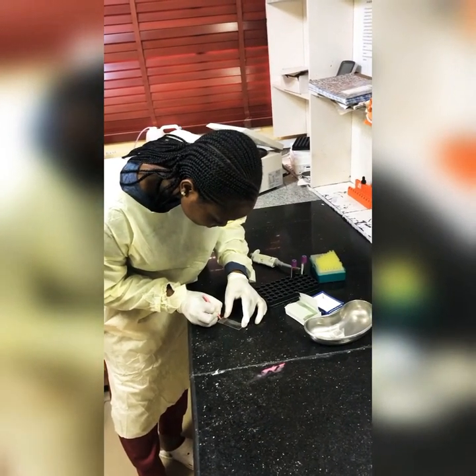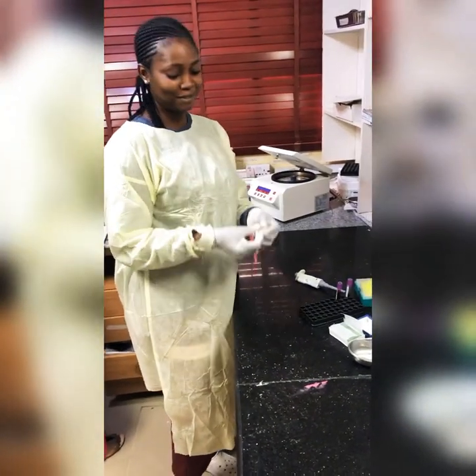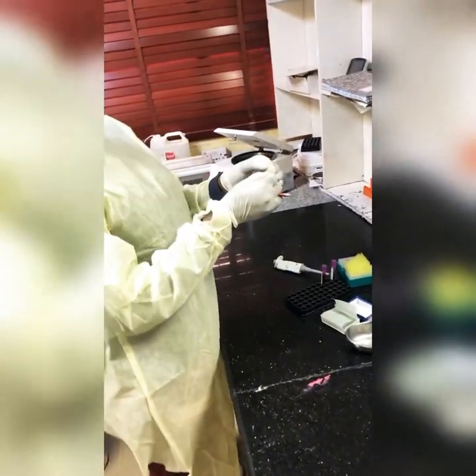Use a pencil to label it — probably the patient's ID or the patient's name. Yeah, that's me labeling the slide.